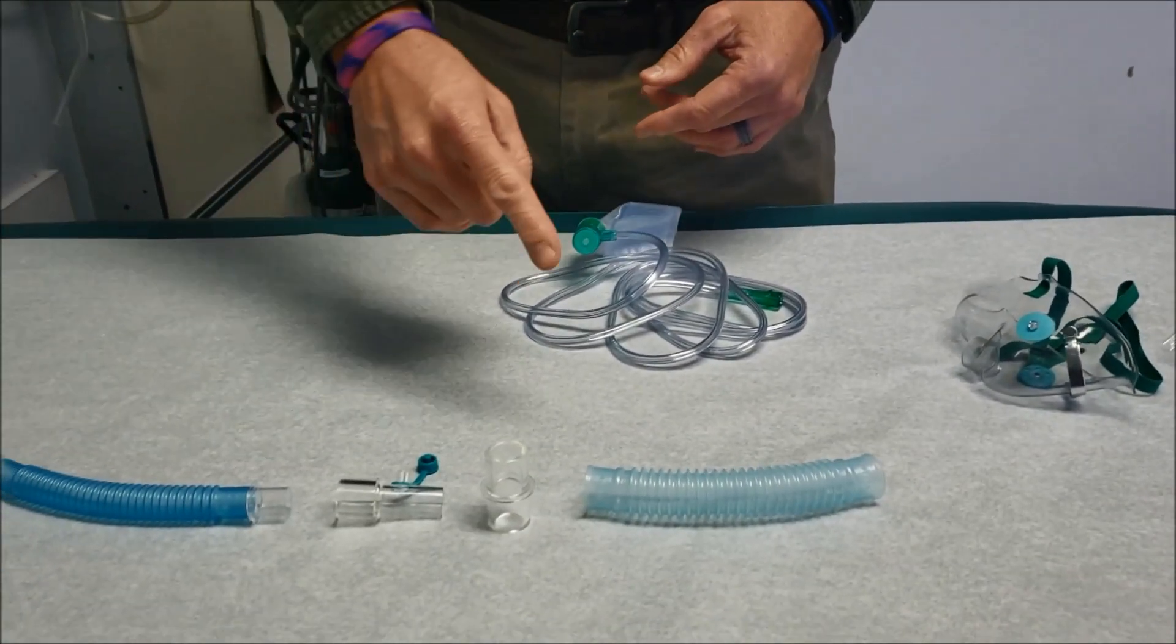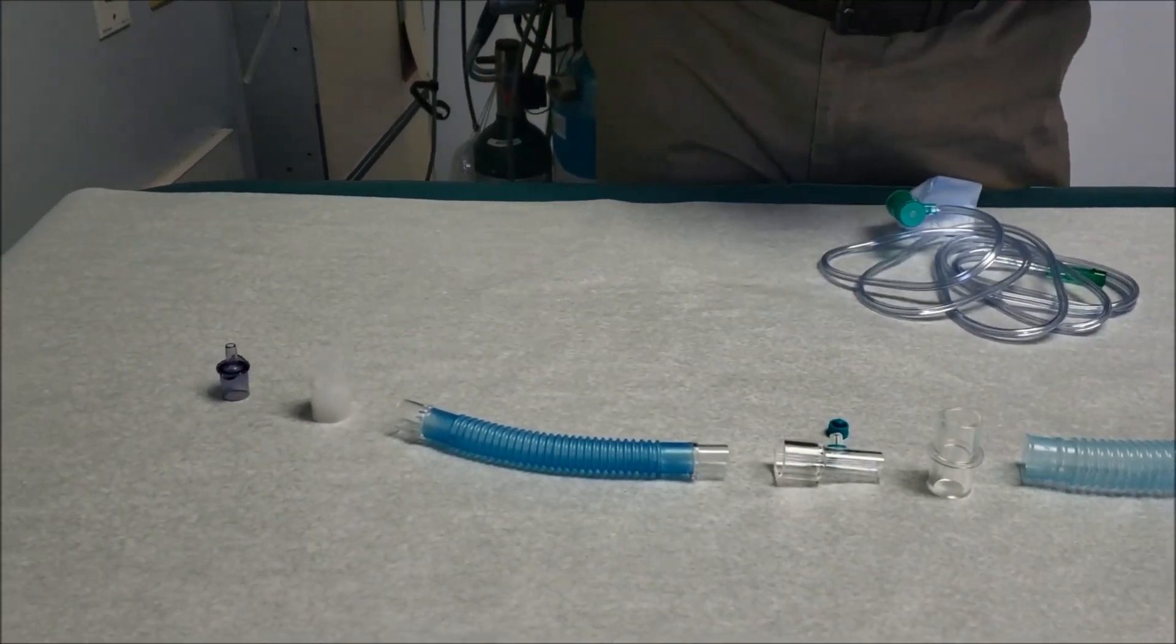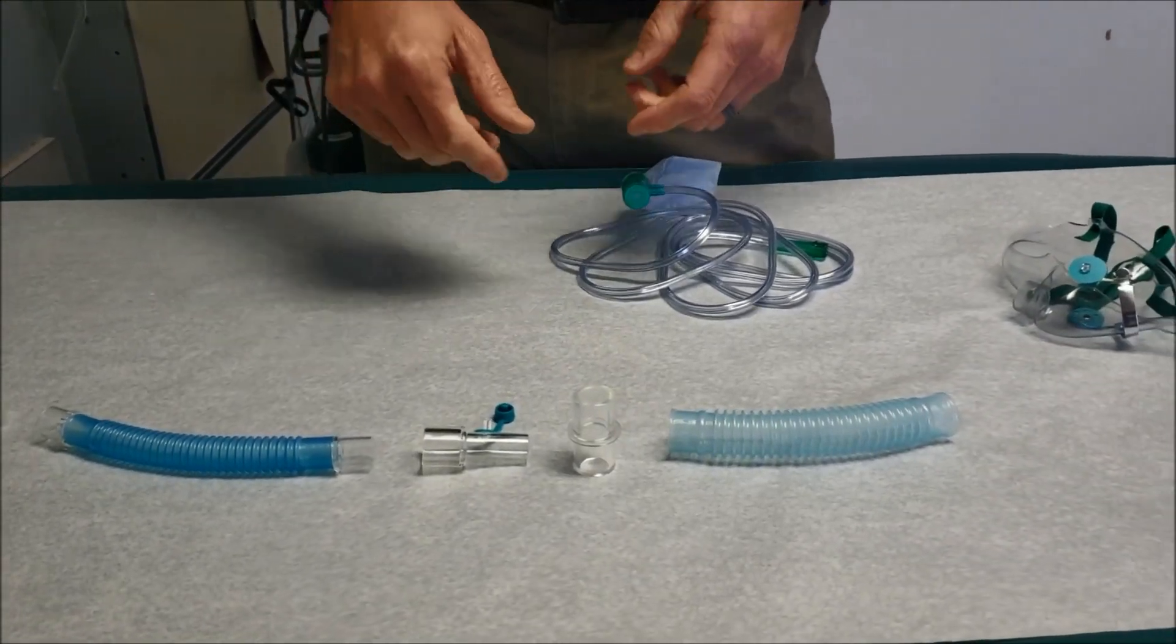These are the parts and the pieces as you'll need to set up. Most of our machines will always have one set up. I try to assure that that's always ready to go, but if not, here's what you need.